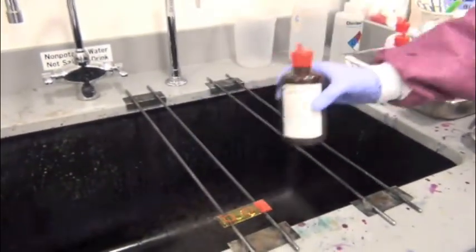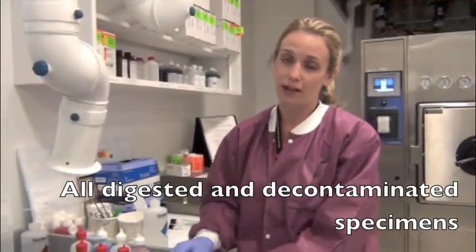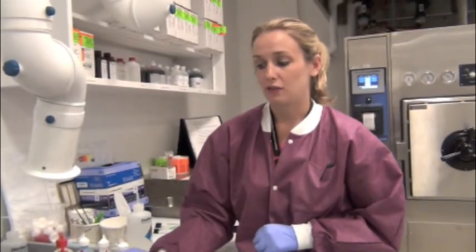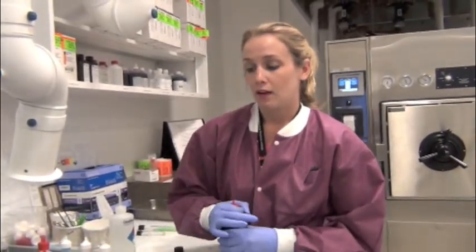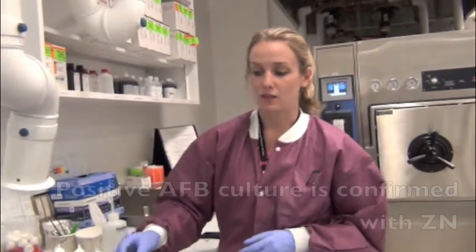Our fluorescent stain is used for direct specimens. All the specimens that come back that are digested and decontaminated will all have a fluorescent slide read within 24 hours. If we should happen to see any fluorescent bacilli on the slide, we'll try to confirm it with the Ziehl-Neelsen stain in order to call a patient positive. The only other time that we would use the Ziehl-Neelsen stain is if we get a culture that turns positive. In order to confirm the presence of acid-fast bacilli, we would then again use the Ziehl-Neelsen stain.